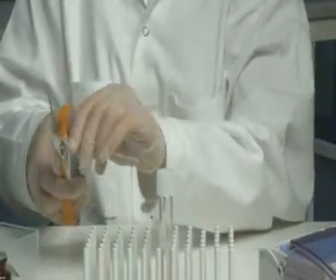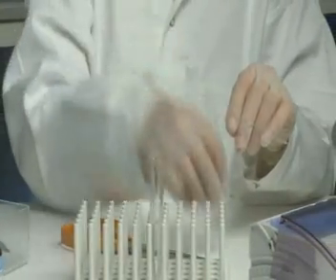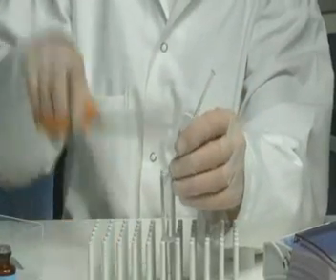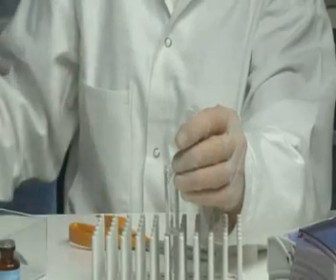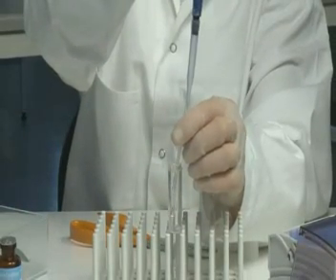Cut one end of the straw and hold the open end above a tube containing 5 milliliters pure sperm wash. Cut the other end and let the contents pour into the tube. Expel the remaining sample with a pipette if needed.